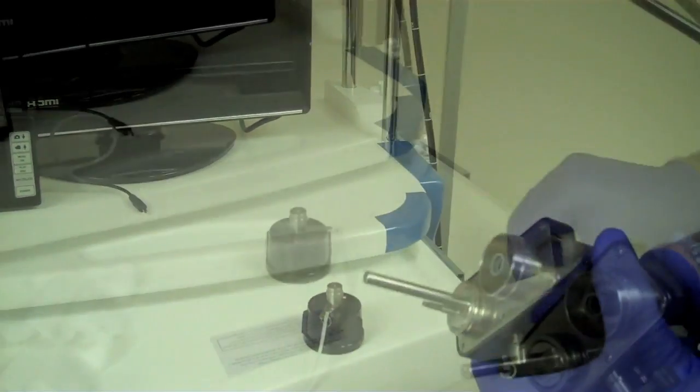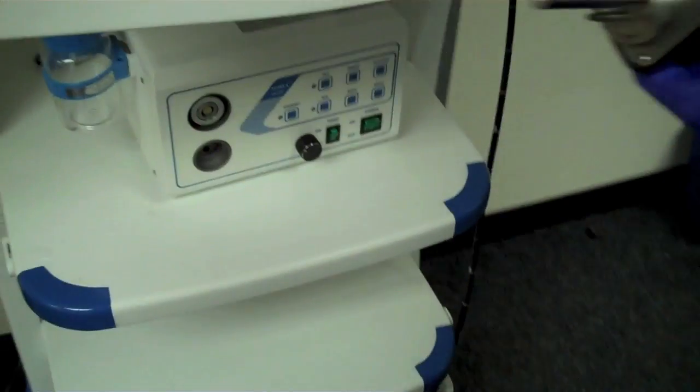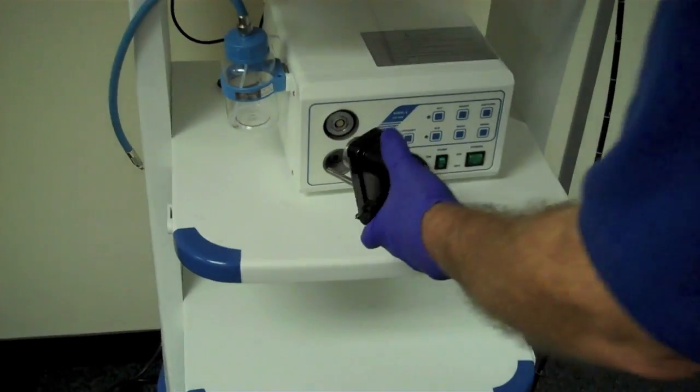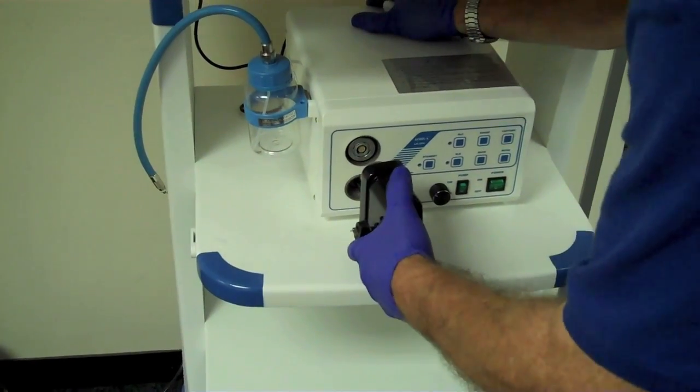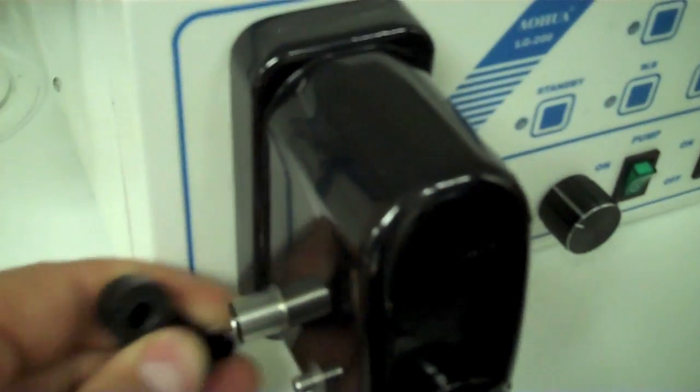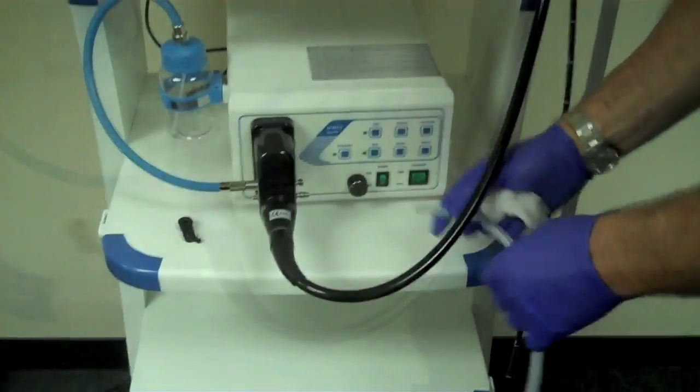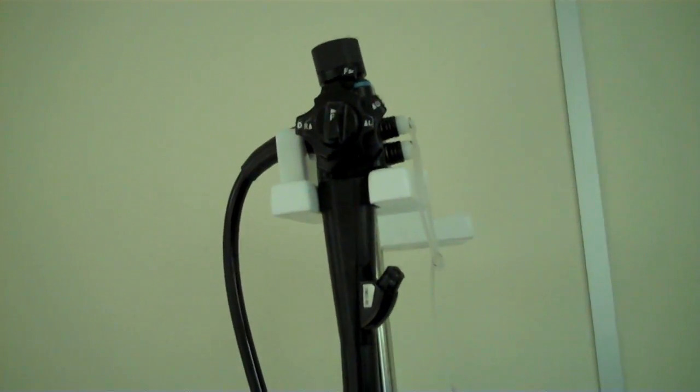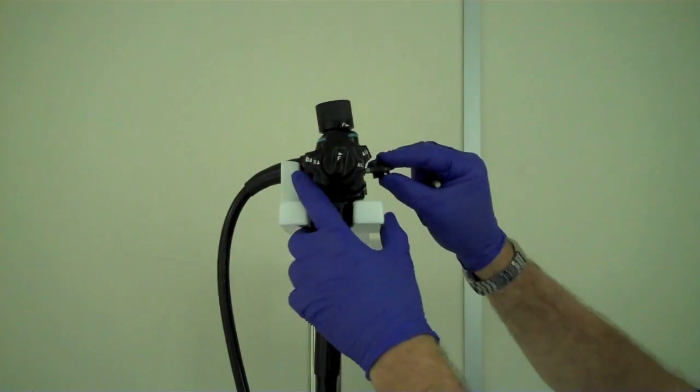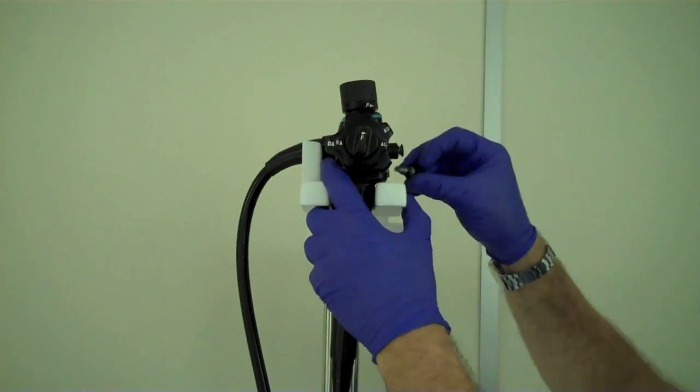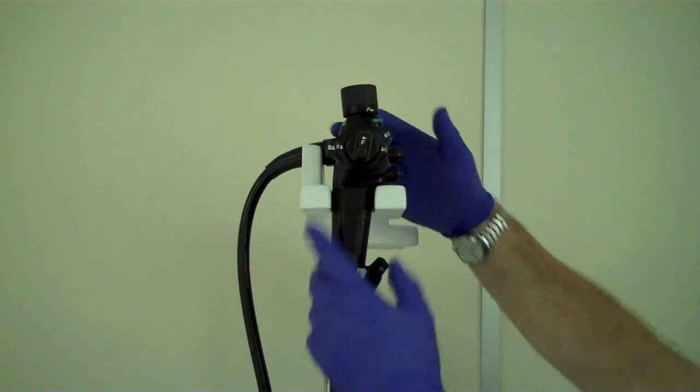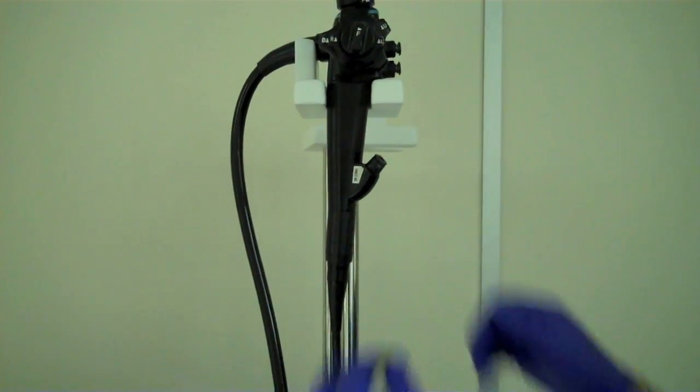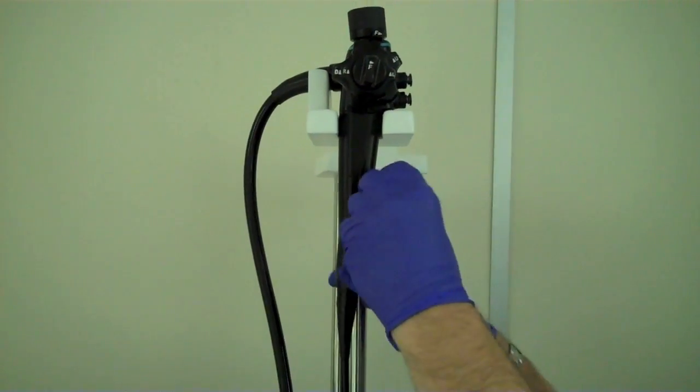Remove your watertight cap and put the umbilical back into your light source. Remember to remove the channel from your air water and refit. Refit your suction and then need to replace the air water buttons. Just replace your channel guide.